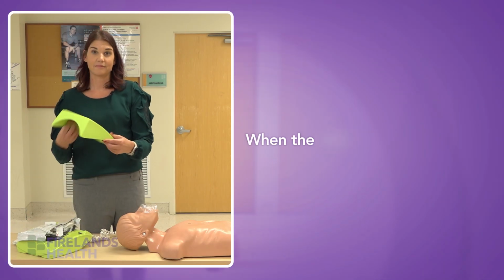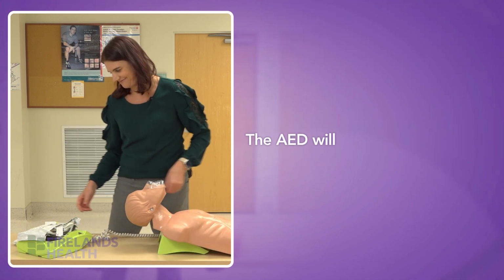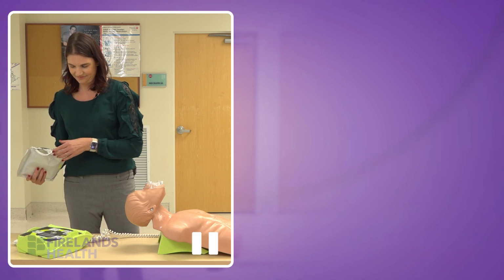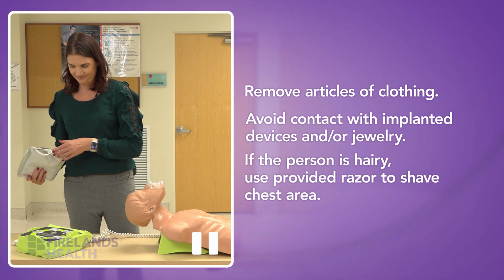When the AED arrives, the first thing you're going to do is turn it on. The AED will prompt you when turned on how to use it. You do need to make sure that you have removed articles of clothing. If there is an implanted device or jewelry, you need to try to stay away from those with the pads. If the person is hairy, you are going to need to shave the chest area before the pads are applied.